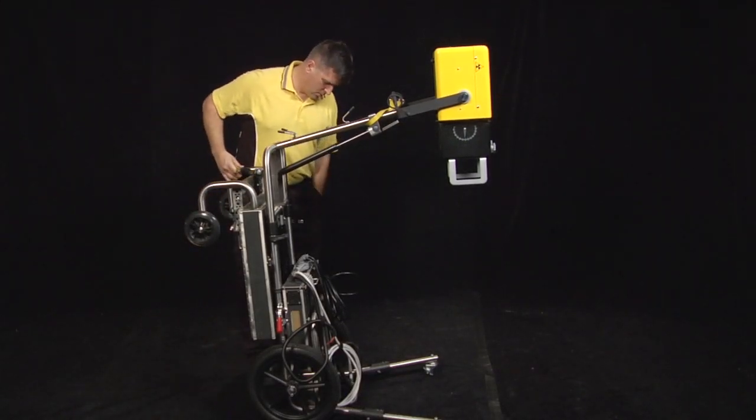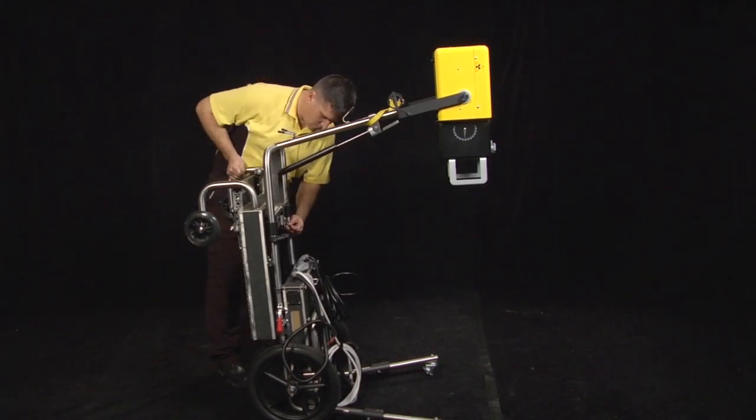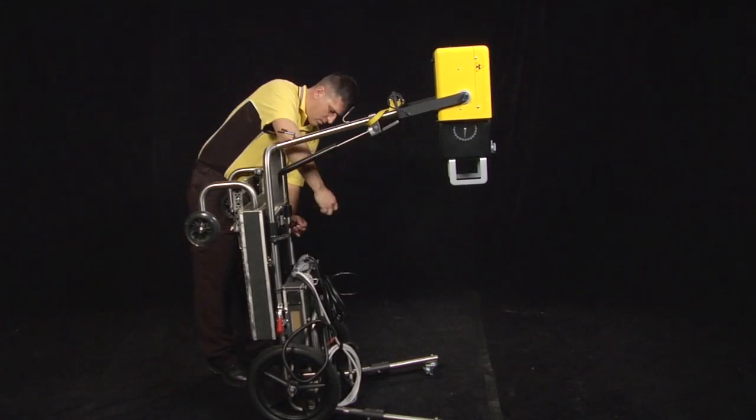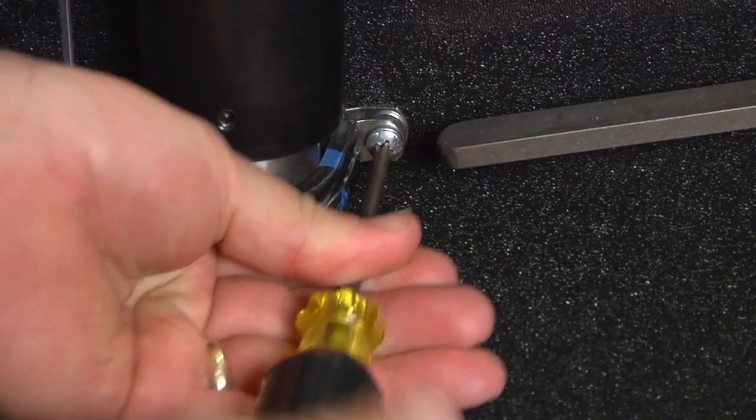Once pin and socket fittings are seated, secure the two frame clamps on the back of the upper container to the frame of the Min X-ray HF120 with the Phillips head screws provided in the clamps.